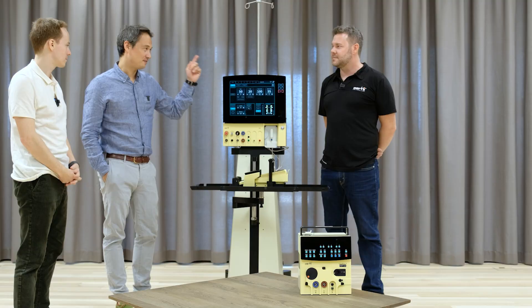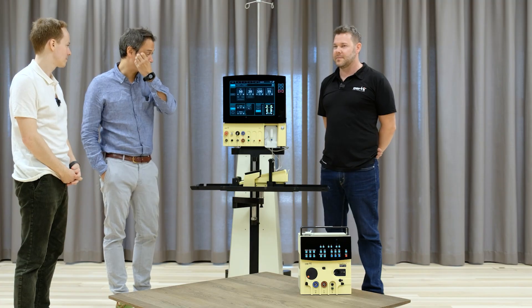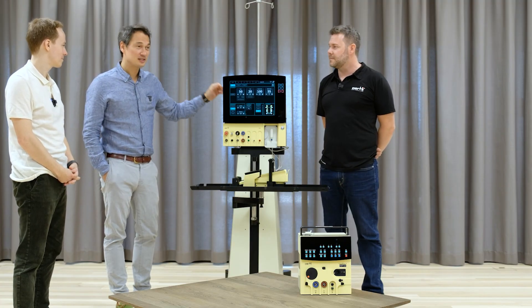We will talk about the machines — very important stuff — and we have David with us from Oertli, who will present us some settings, because in the end you need to rely on your application specialist to set up the machine for you individually.